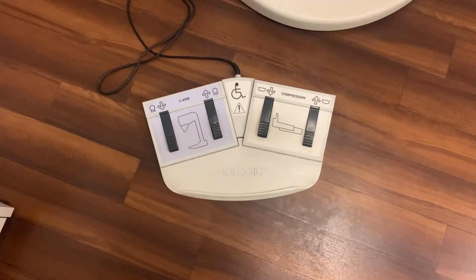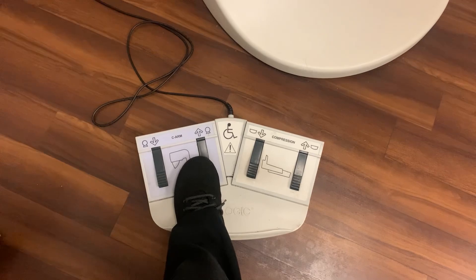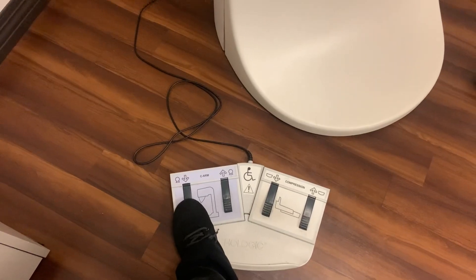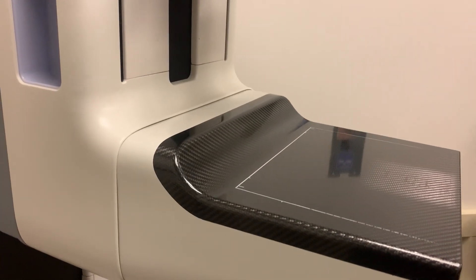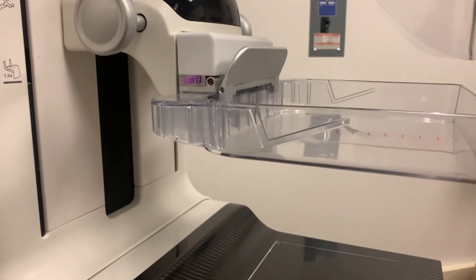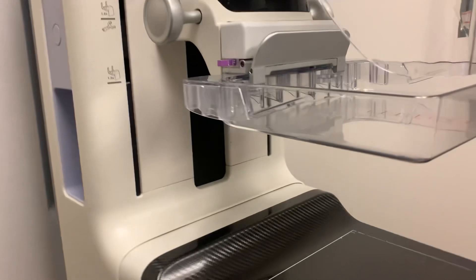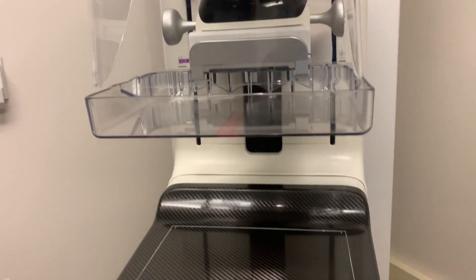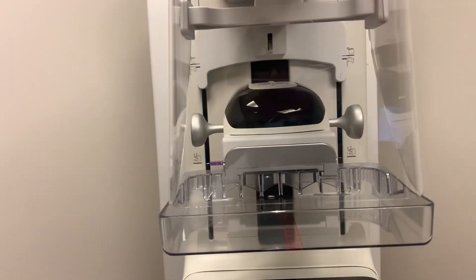And then you have your foot paddle on the floor where you can bring the machine up. You can bring the machine down. You can compress the patient's breast or you can bring it back up. And then I will show you how to turn the machine in just a second.